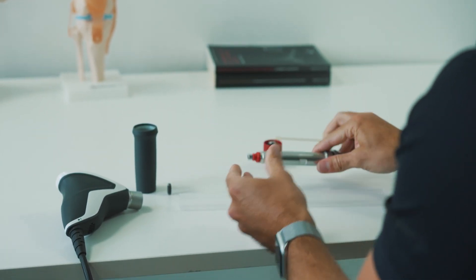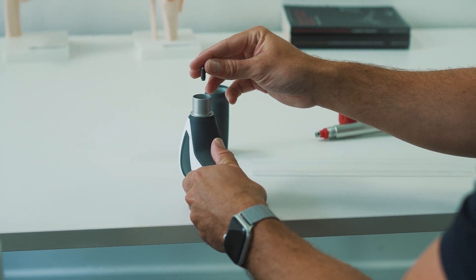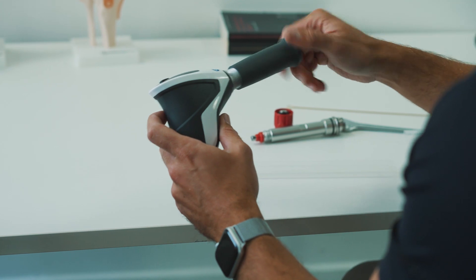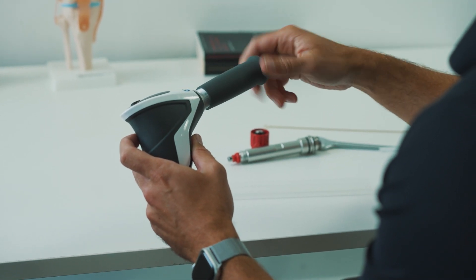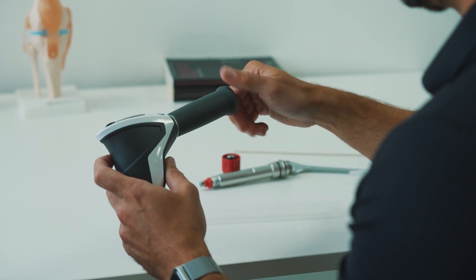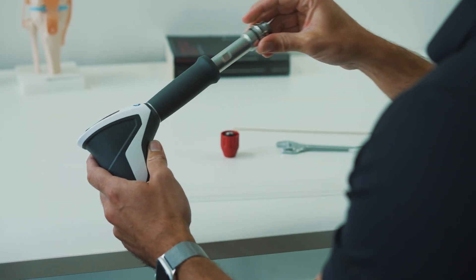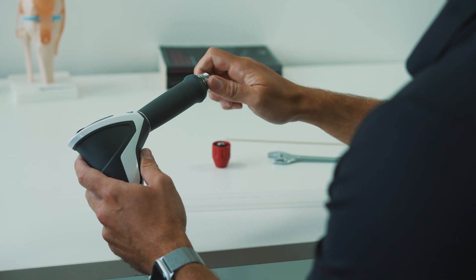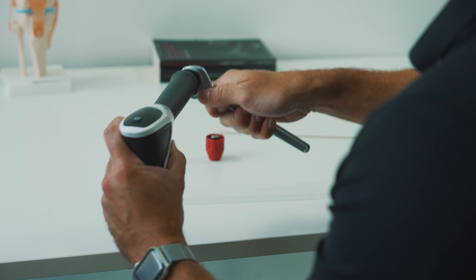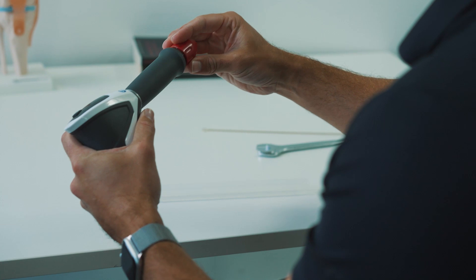Once you've done this, you can reassemble your handpiece. Reinsert the projectile into the handpiece — it will automatically self-center. Attach the grip, ensuring it's secured, and then reattach the barrel. Use the spanner to ensure that this is fully secured. Finally, you can reattach your transmitter.